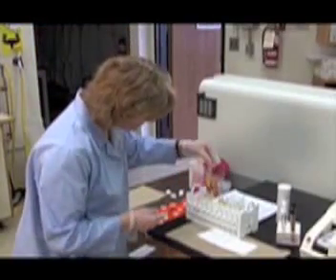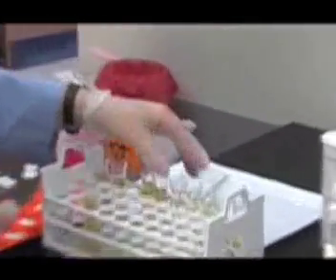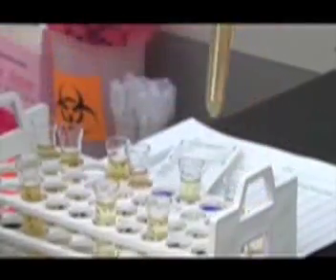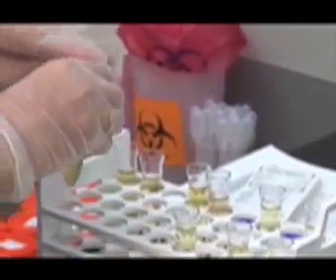Microscopic examination is not required for specimens in which the results are all negative. However, it is required on specimens that are positive for leukocytes, nitrite, protein, blood, or the presence of sediment. Urines with these abnormal test results should be set aside and securely capped to avoid spillage in the centrifuge.